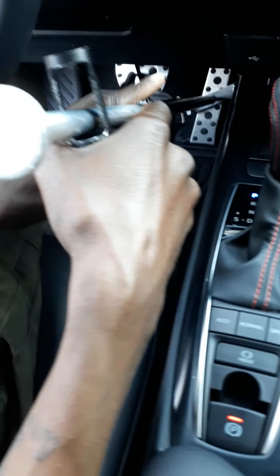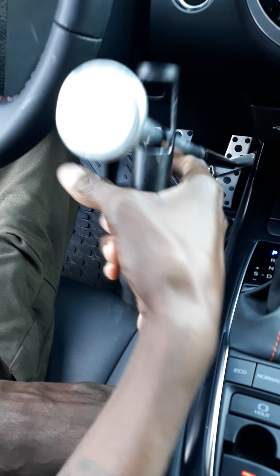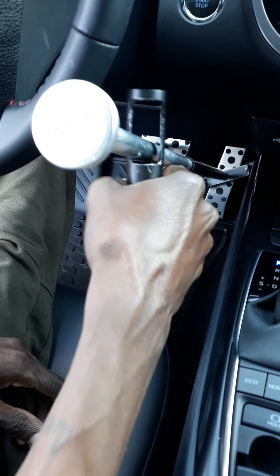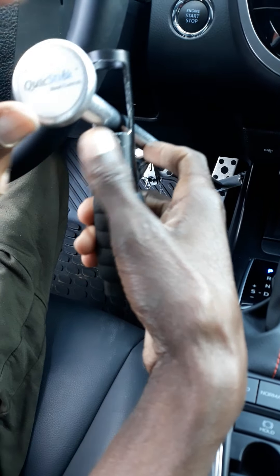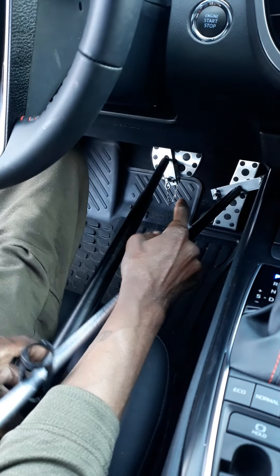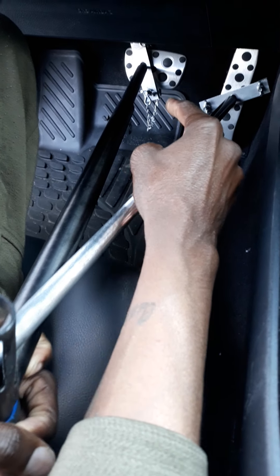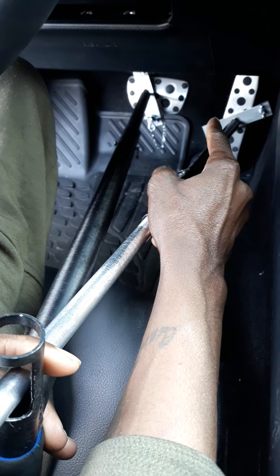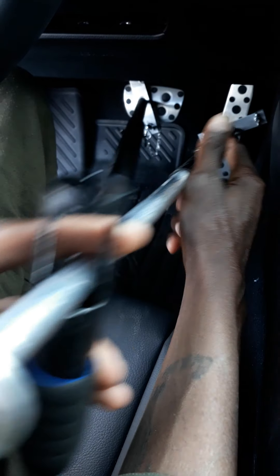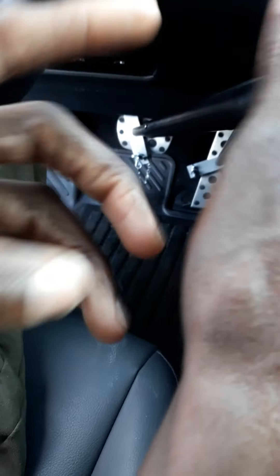So if you look at it, it's a two-piece rod connected from two separate poles, but it's one unit that you use to drive. If you push down on the black bar here, this is the brake. And if you look up here, this is your gas — the silver circle. So you push down on this, and when I push the black bar for the brake, you see it goes in. And then the gas, with the silver circle button here, when I push it, it pushes down on the gas. So it splits as one unit.